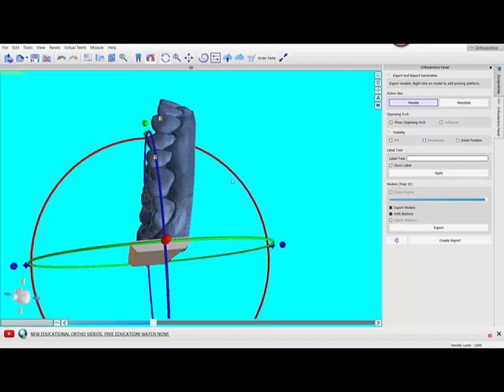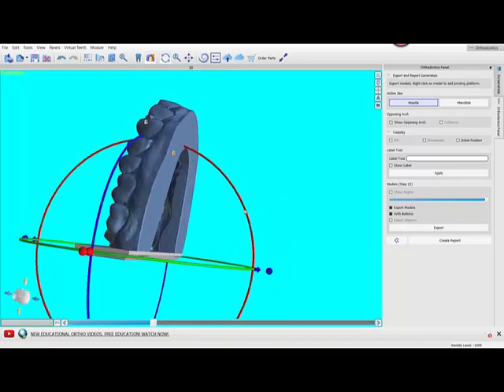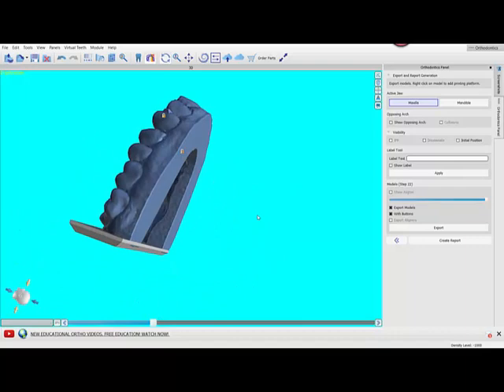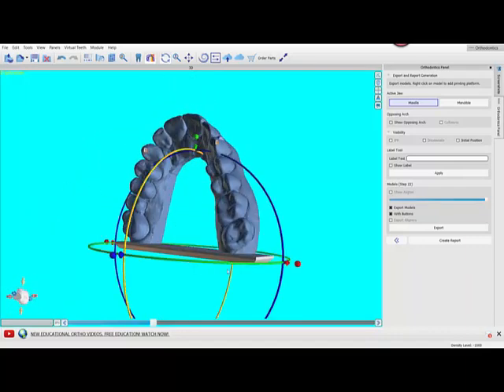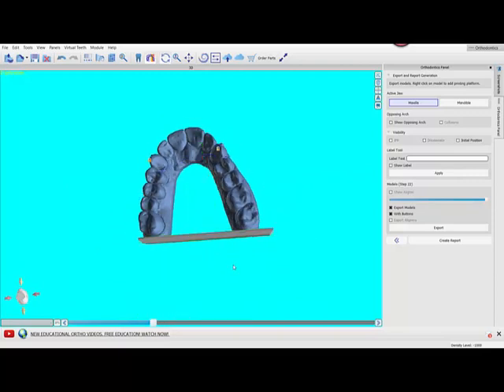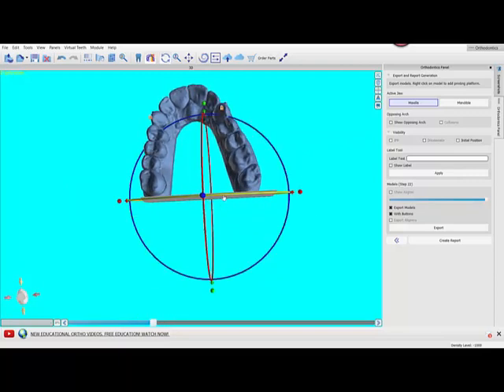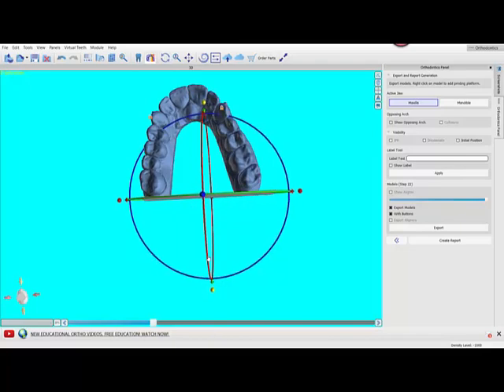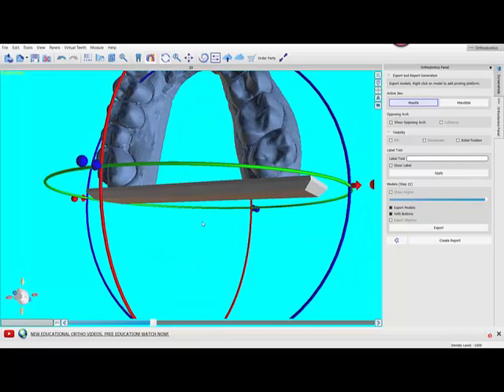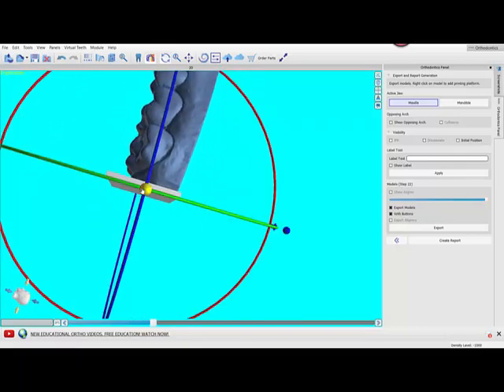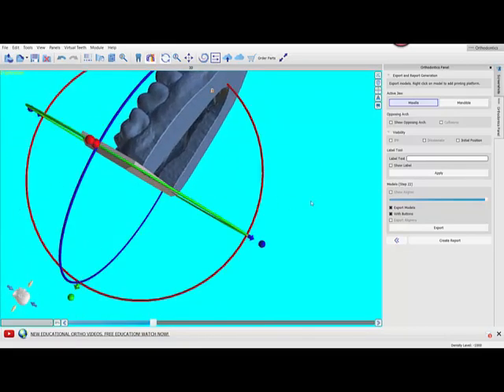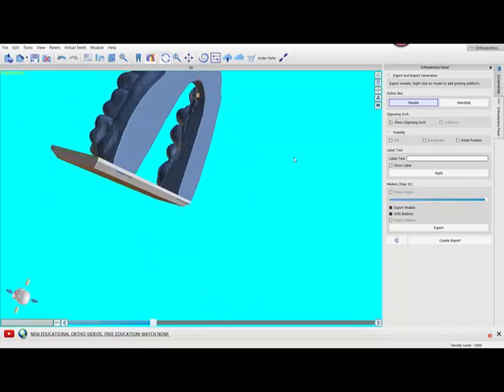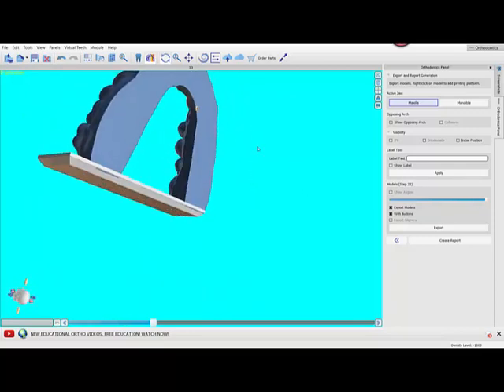We've talked about embedding the heels and tipping it back. The last thing we're gonna do is scale it. Now if you have really awkward heels, really narrow-pointed, you can make this whole base, this whole platform, taller by grabbing this circle and scaling it this way. The default file is 2.5 millimeters thick which should be fine for most all printers and almost all cases, but you have the flexibility to make it thicker if necessary. It only costs you a few more cents in resin and a couple more minutes to print, so it's better to be safe than sorry.